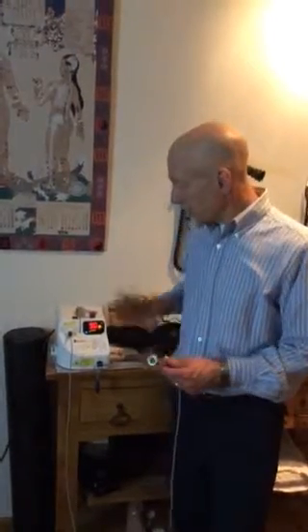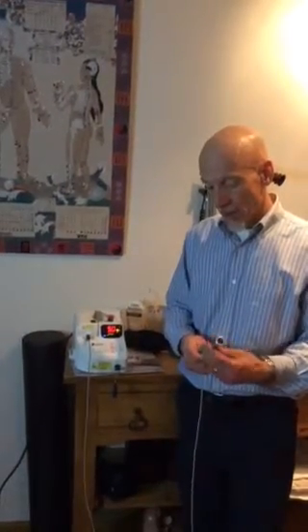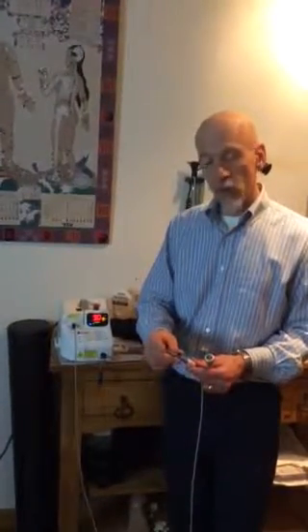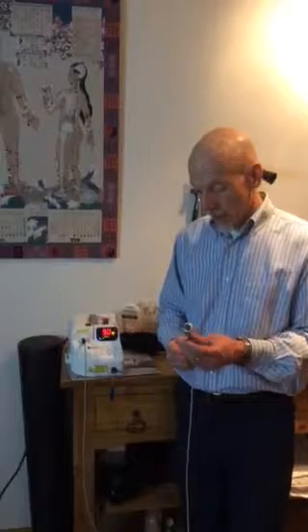We really like the versatility of the Pilot. The fact that it's got both a pulsed and a continuous mode makes it nice. Another really nice added feature is that you can screw the handle off and use this small end here for acupuncture point stimulation. My partner and I do a great deal of acupuncture, and being able to put this on one watt and do an eight-second stimulation per point really works extremely well.